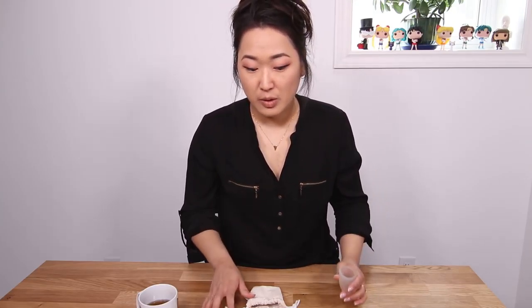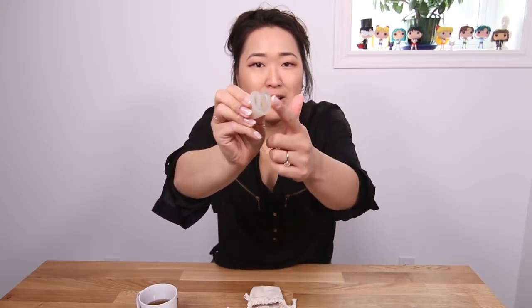If you're wondering how to insert it — the first time I recorded this I actually got up on the table, so I'm going to try to avoid that today. Basically what you're going to do is take this cup and fold it in half, and then fold it in half again into a U shape. I kind of pinch it just underneath the lip here. When you're inserting it, I lead with one end — like the head — and just kind of put it right in there. It's a little easier if it's lubricated, so sometimes I use water depending on what's going on that day.